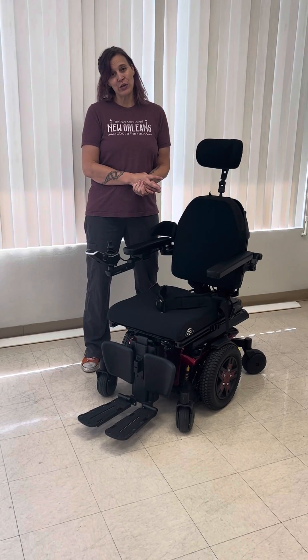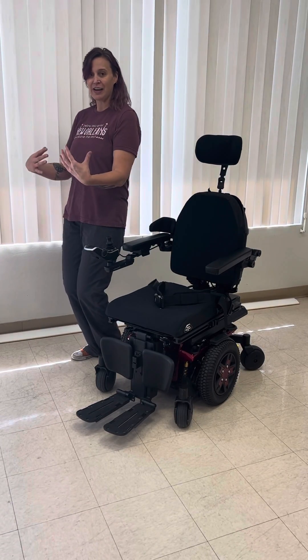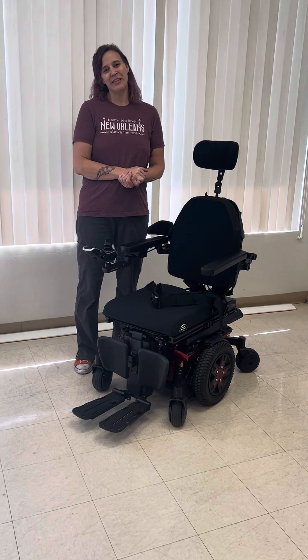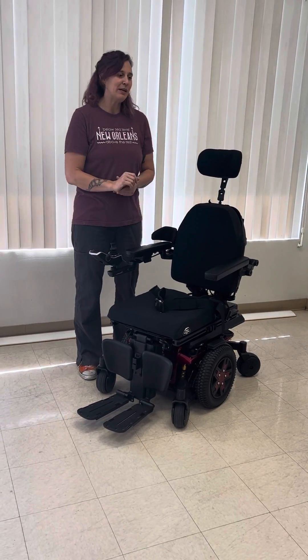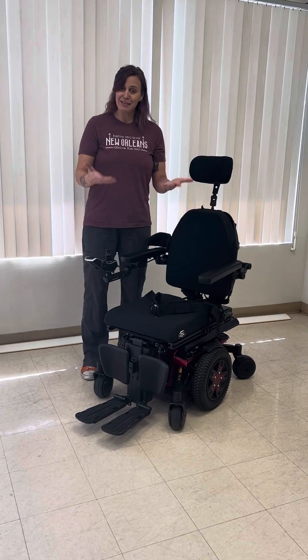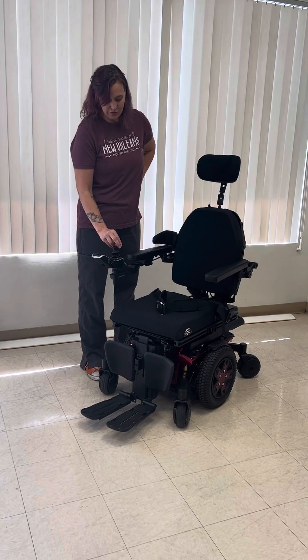This is a great feature for folks who need a little help with their stand or squat pivot transfers. If you need a chair that kind of helps dump you out just a little bit, this is a great feature for that. It can also help with your activities of daily living — reaching the back of the fridge, doing dishes, maybe doing the laundry if you have a top-loaded washer/dryer system. So this is how that system works — it's just going to push you forward and up just a little bit, that 10 degrees.